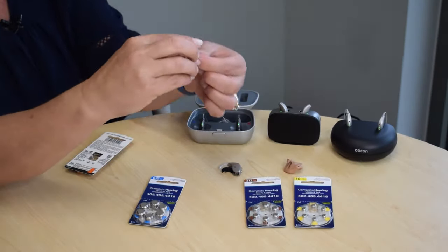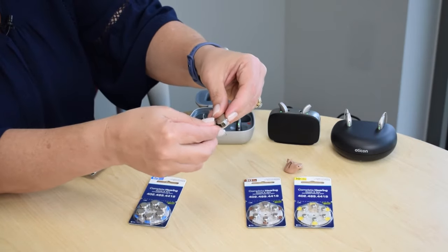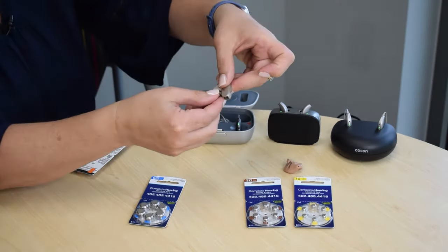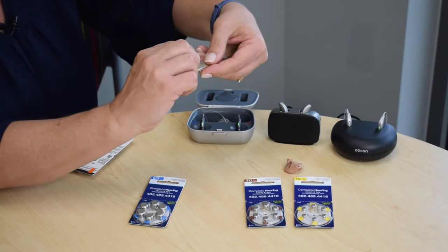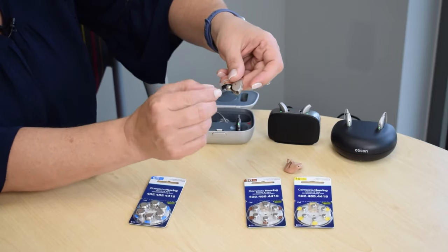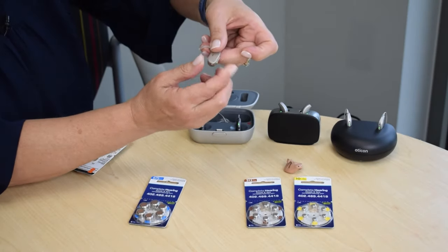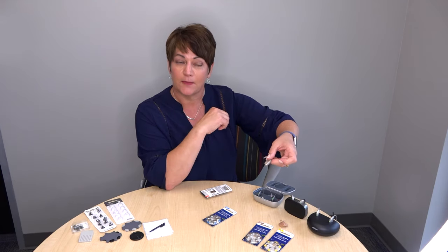The recommendation is to take the tab off and let it charge — let that air into the battery for about two minutes. We're going to pretend two minutes have passed and put the battery right inside the door. Your battery is only going to fit in the door one way — typically flat side up. If you put the battery in upside down, the door won't shut. So it's a little bit foolproof, which is nice. Put the battery in and shut the door.